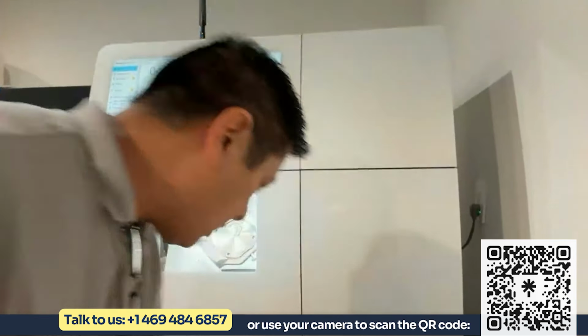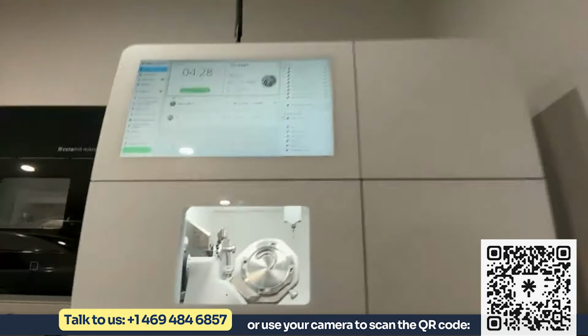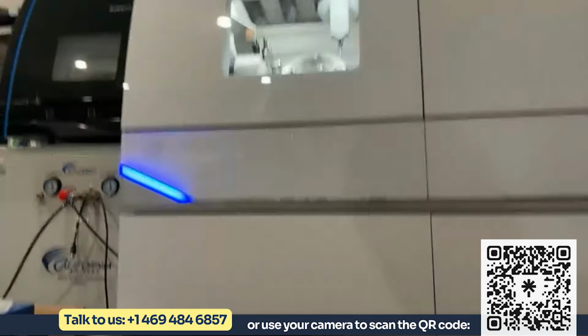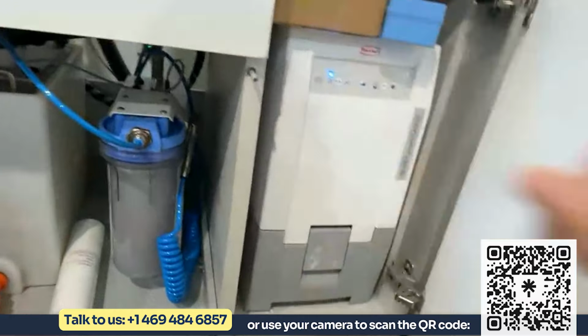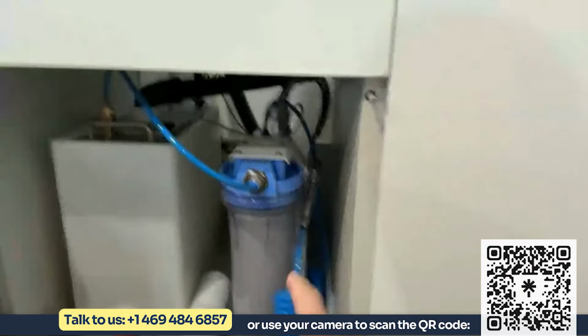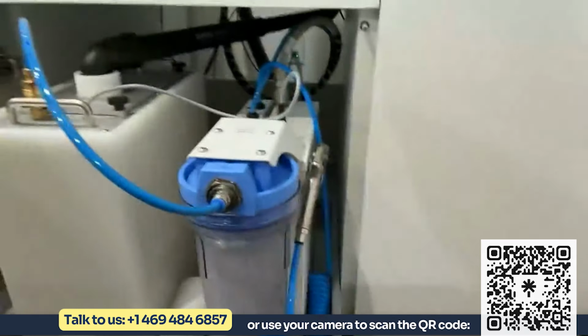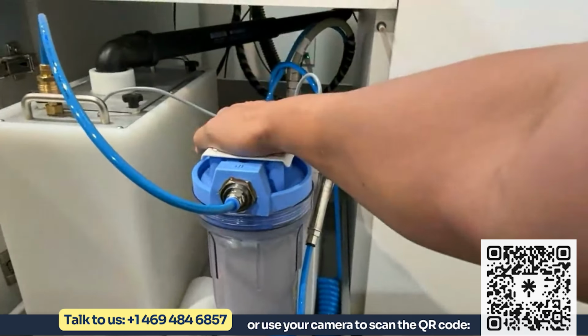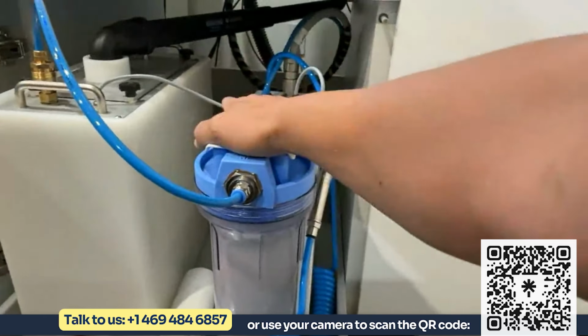And then the last thing I'll talk about is down on the bottom. Again, like the Motion 3, we have the suction unit. It's the same one. But one thing we did in this unit that I really like is that we put the water pump, which is normally on the inside of the milling machine, on the outside.